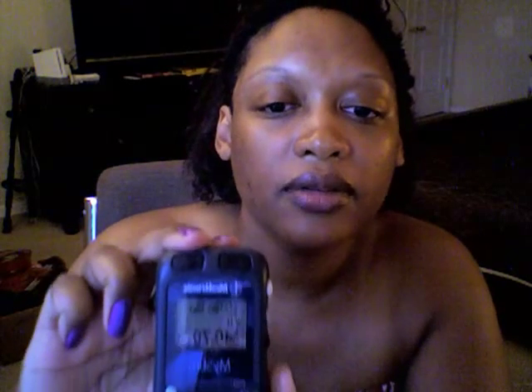On the screen, this image here shows that the neurostimulator is on. The image in the middle is the battery level of the neurostimulator, and this one here is the battery level of the programmer. This here with the checkmark is the B — I have two groups, an A group and a B group. So I can go back and choose whichever group I want. Right now the B group is selected.